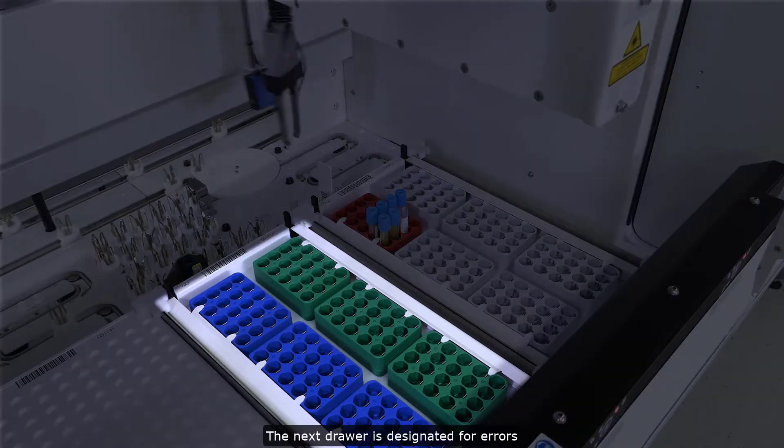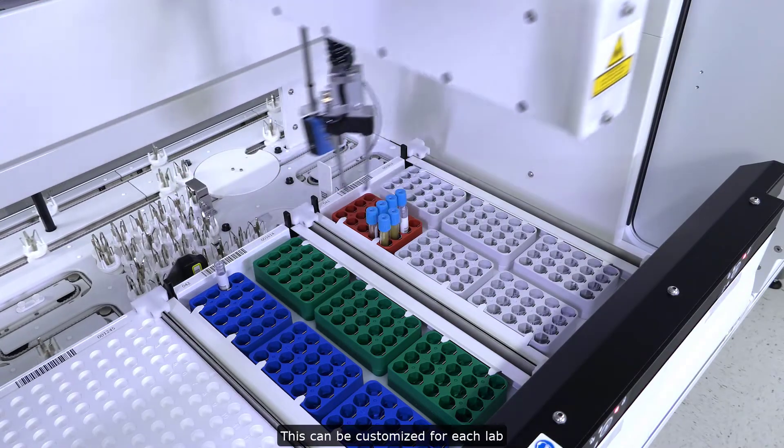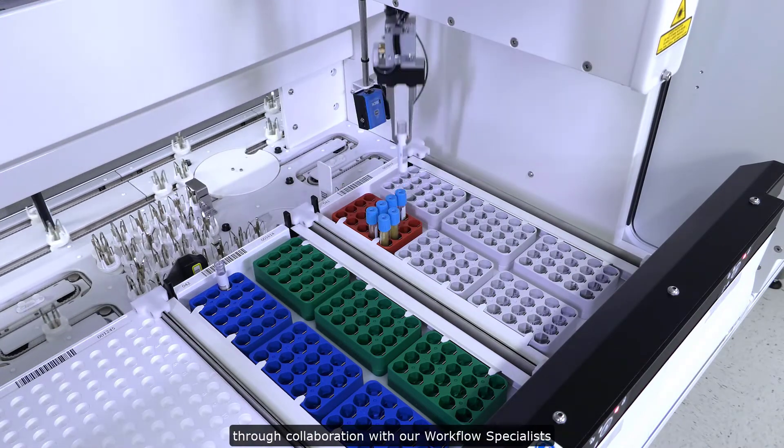The next drawer is designated for errors and specified sorting criteria. This can be customized for each lab through collaboration with our workflow specialists.